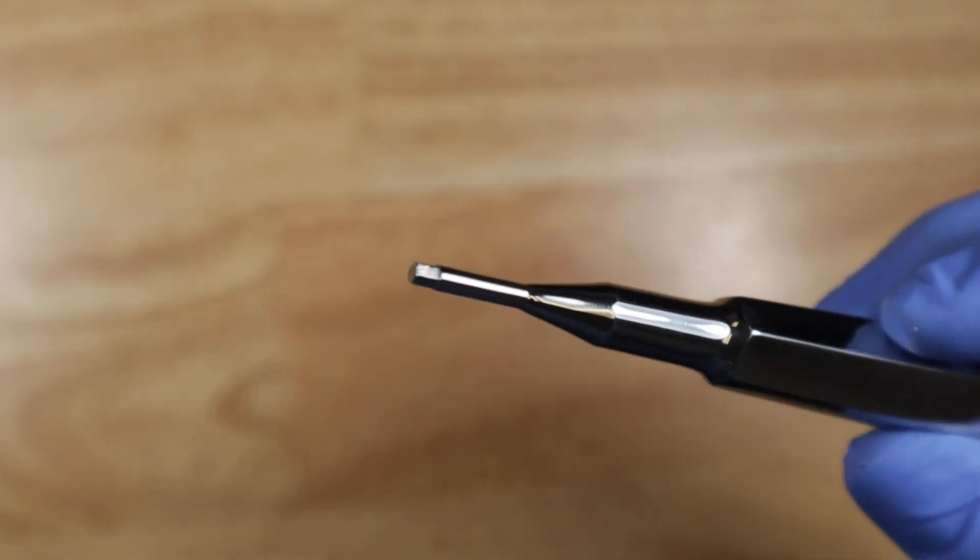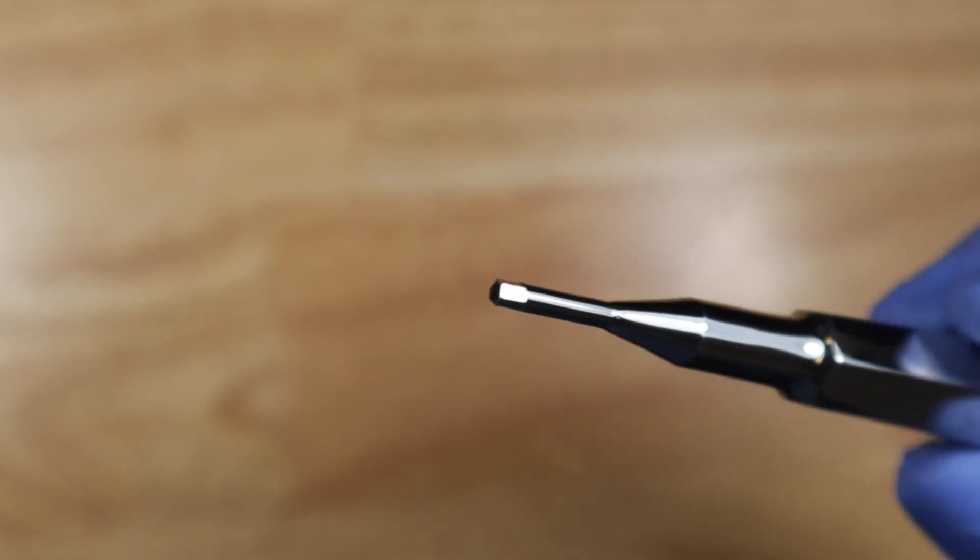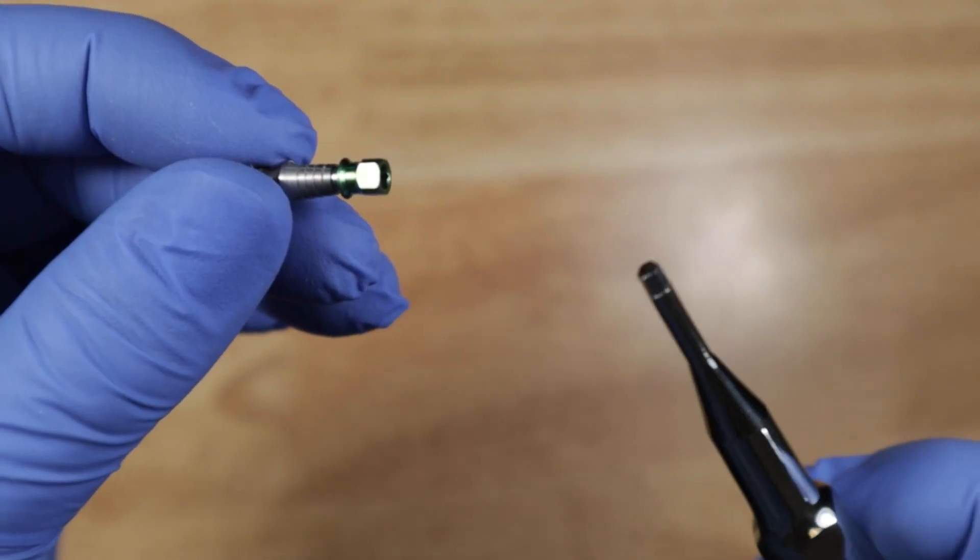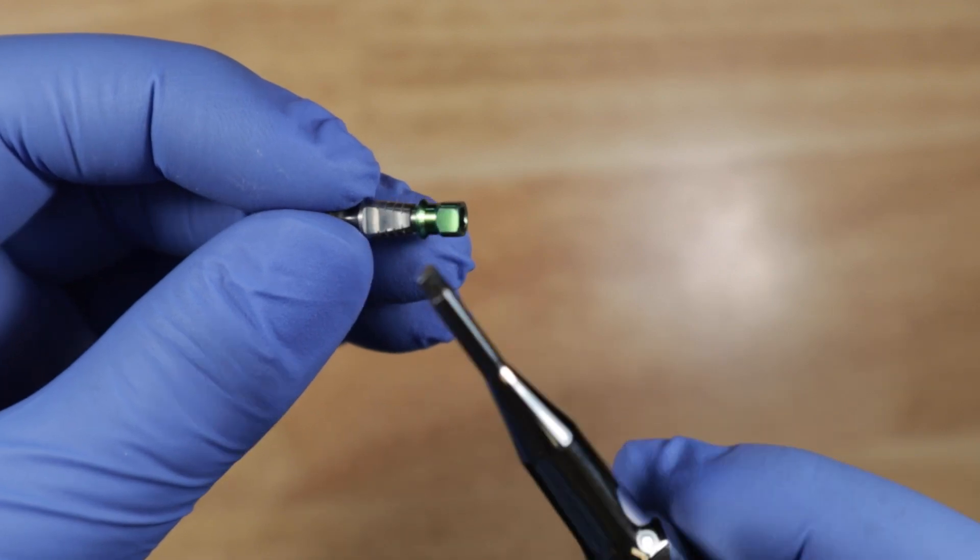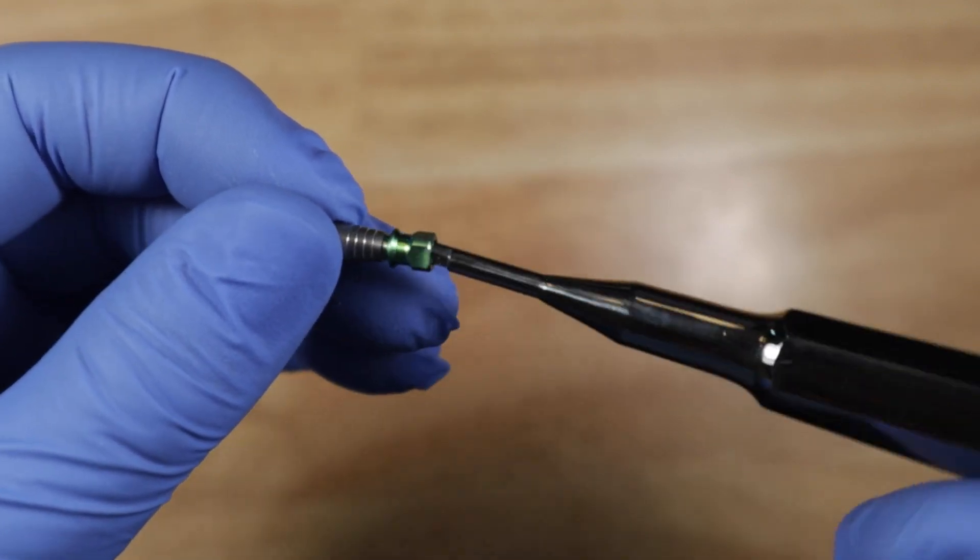So this hand driver has a large hex at the end, you see that hex right there? And so this hex can be used to insert into the implant transfer. This is the implant transfer, you'll see it fits right in there.